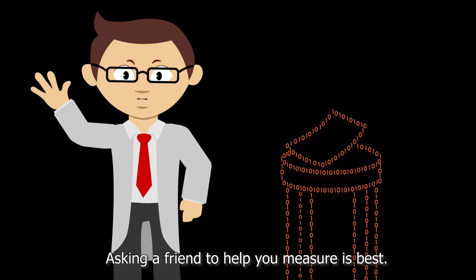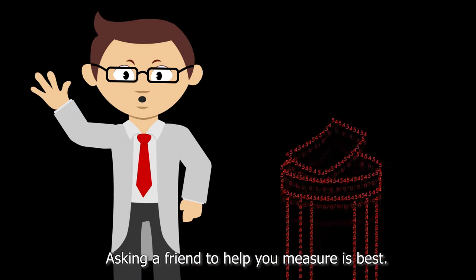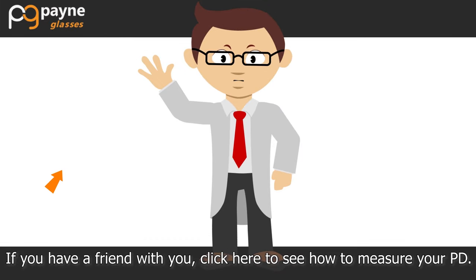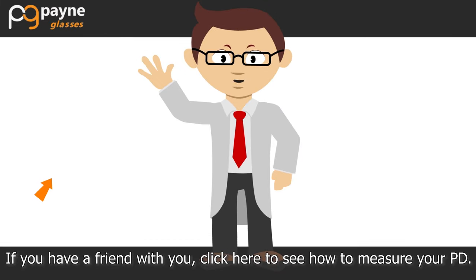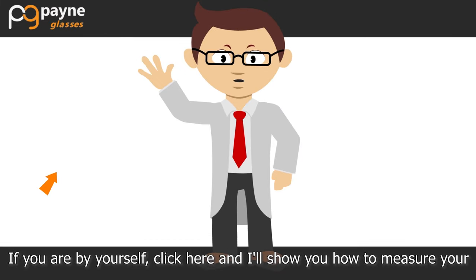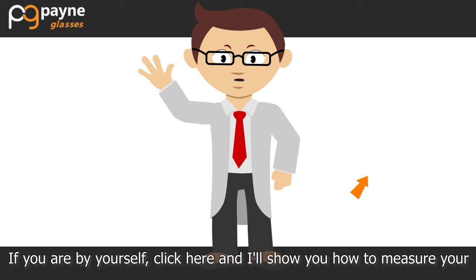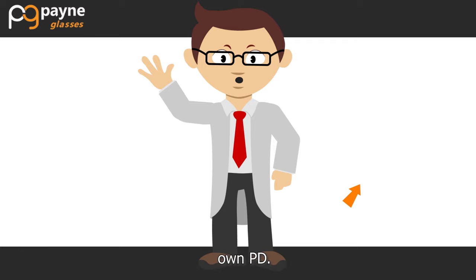Asking a friend to help you measure is best. If you have a friend with you, click here to see how to measure your PD. If you are by yourself, click here and I'll show you how to measure your own PD.